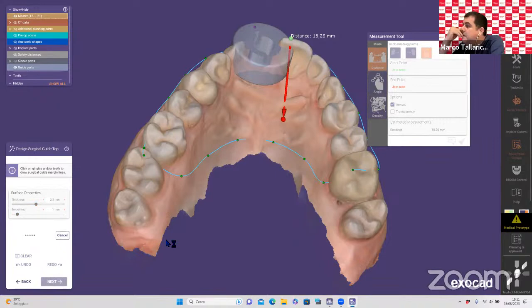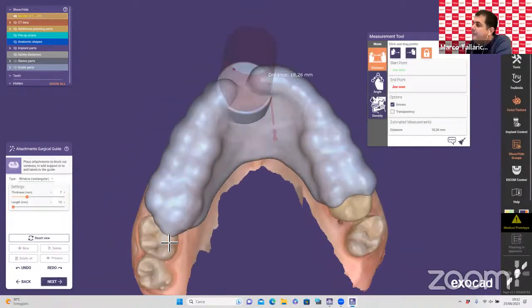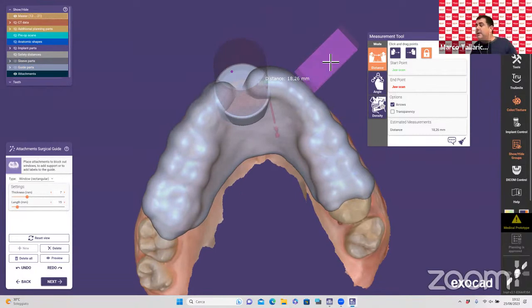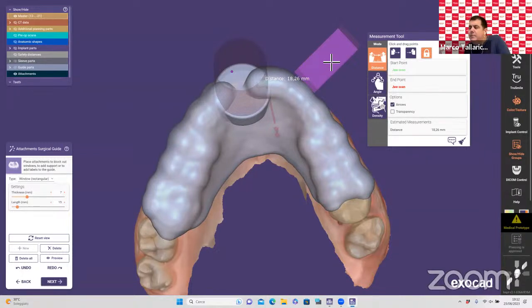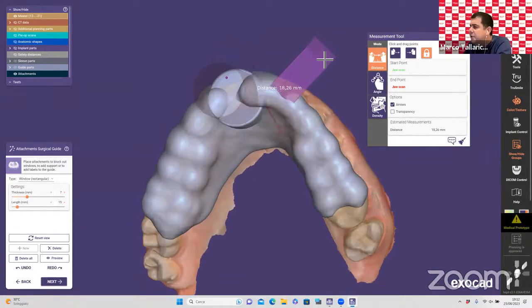I prefer a full guide rather than half guide to conserve resin. I suggest full guide when the matching is good. Add inspection windows — I suggest a couple close to the sleeve and one or two posteriorly to confirm the guide fits well with no gaps between teeth and template. We can also add text to label the case. Then click next and the software automatically creates the template and exports the STL file — without any additional fee. In contrast, RealGuide requires a fee for export.